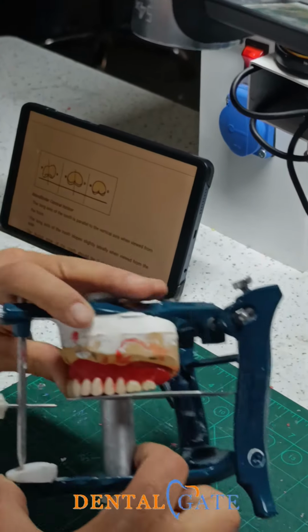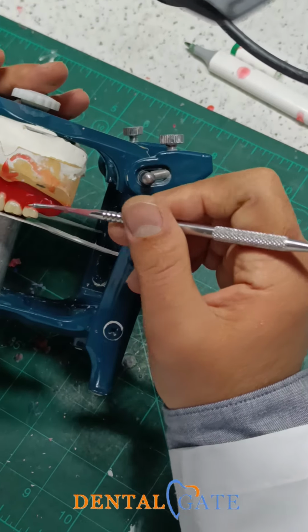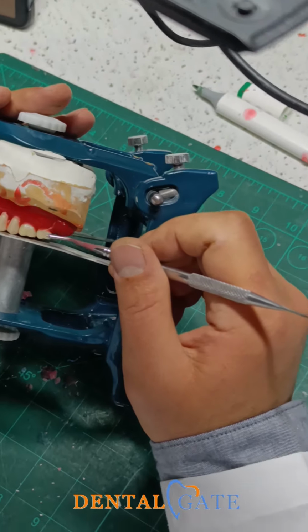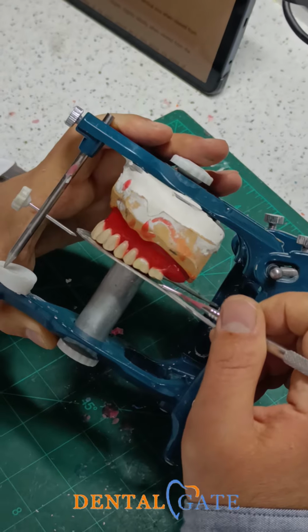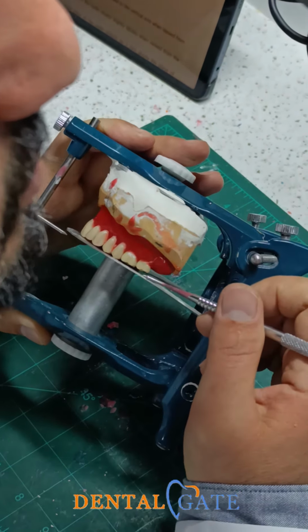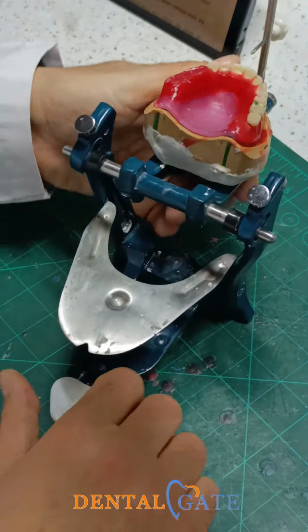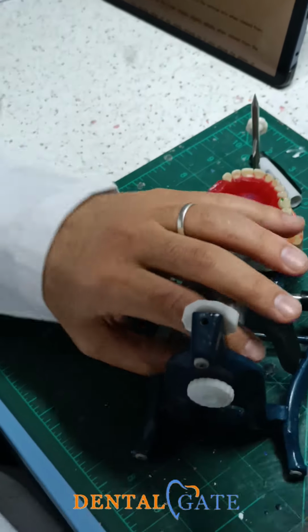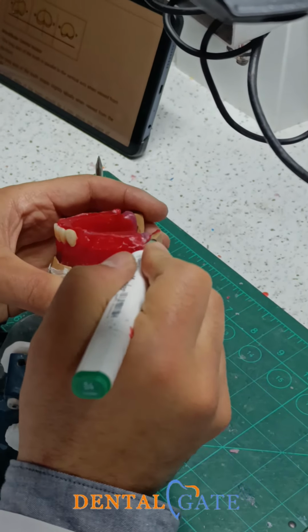The space of the table, it should be what? 1 millimeter? Okay, 1 millimeter? In your theory lecture, 1 millimeter or 2 millimeters regarding the space? We don't study that? There's no information about that? No. The actual reference is not to measure this space. The actual one, I will put my lower, depending on the retromolar part. Regarding this plane. This is my plane.